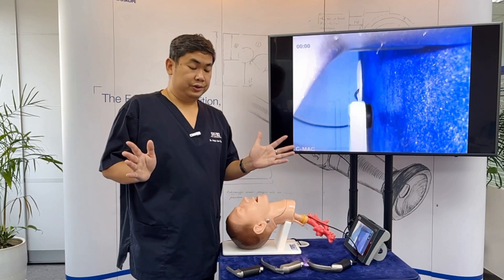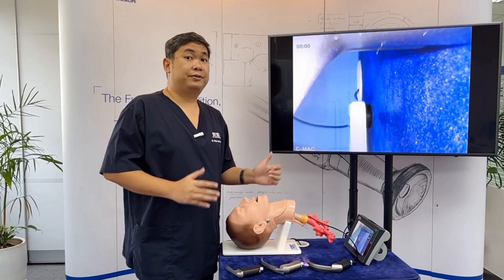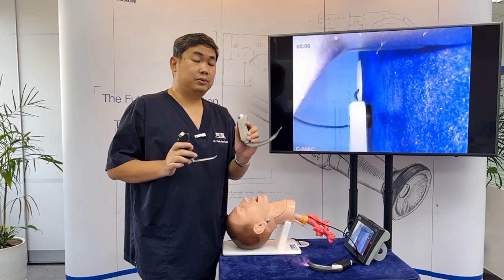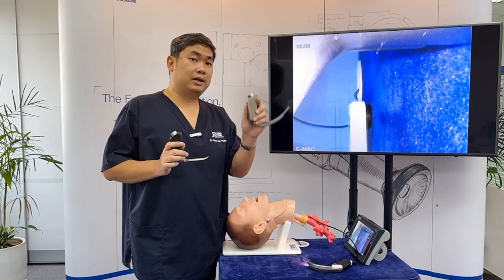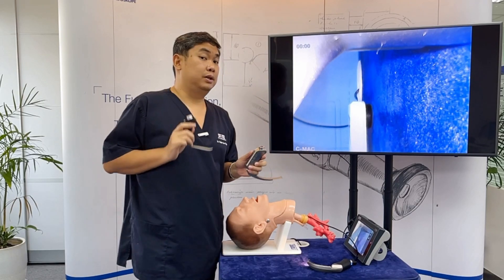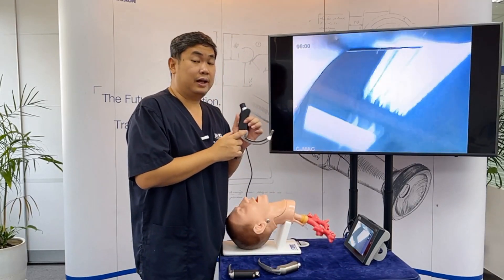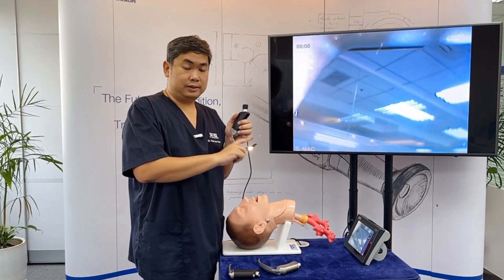If you have beginners, show them the different kinds of blades. You have the classic blades, which are the curved blades such as the Macintosh, and the straight blades such as the Miller blade. And now we also have the hyper-angulated blades.